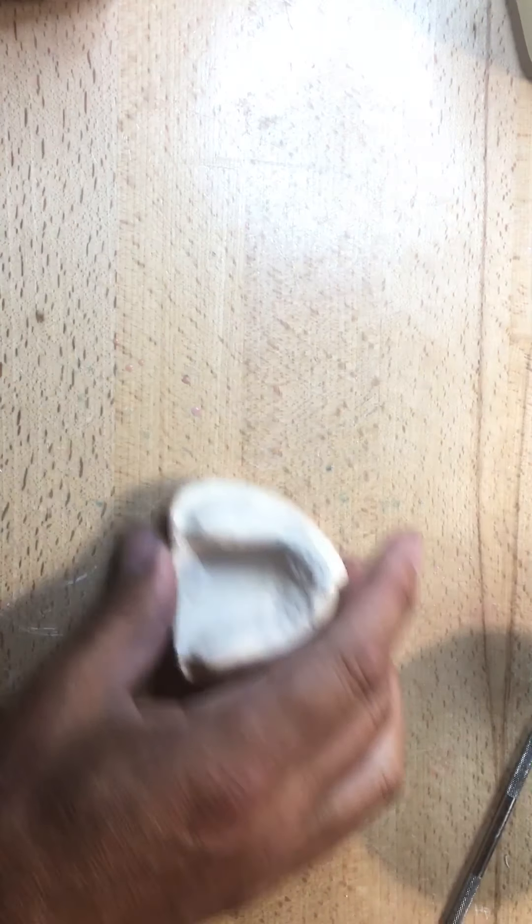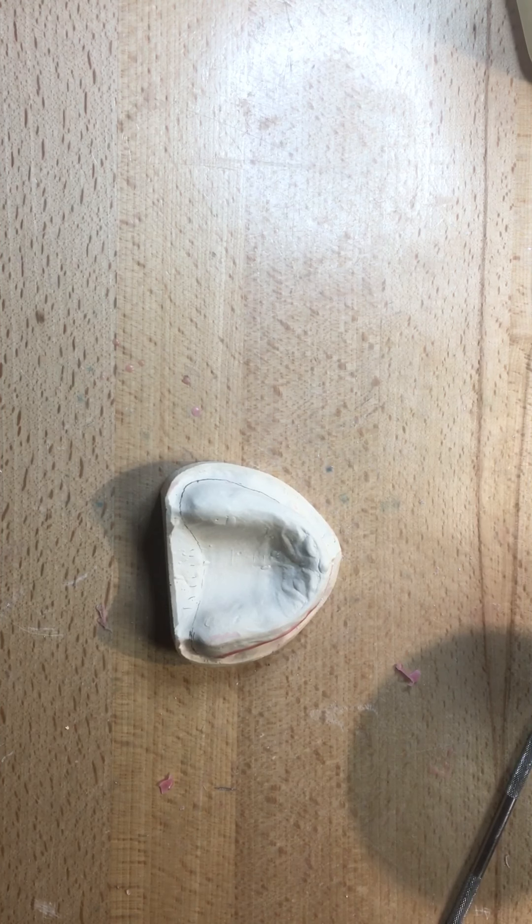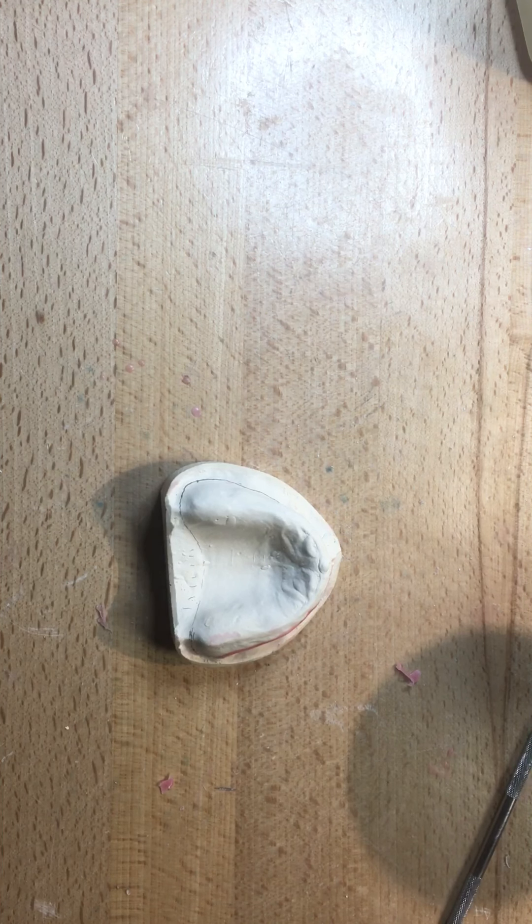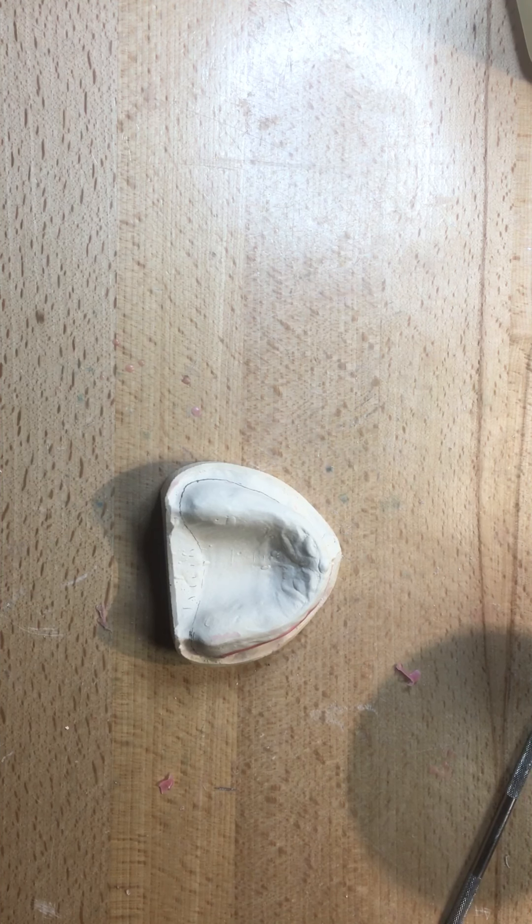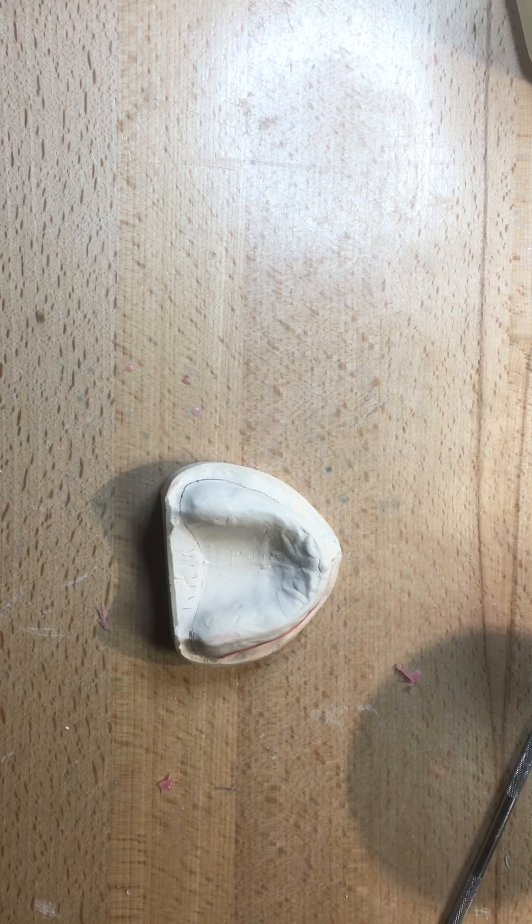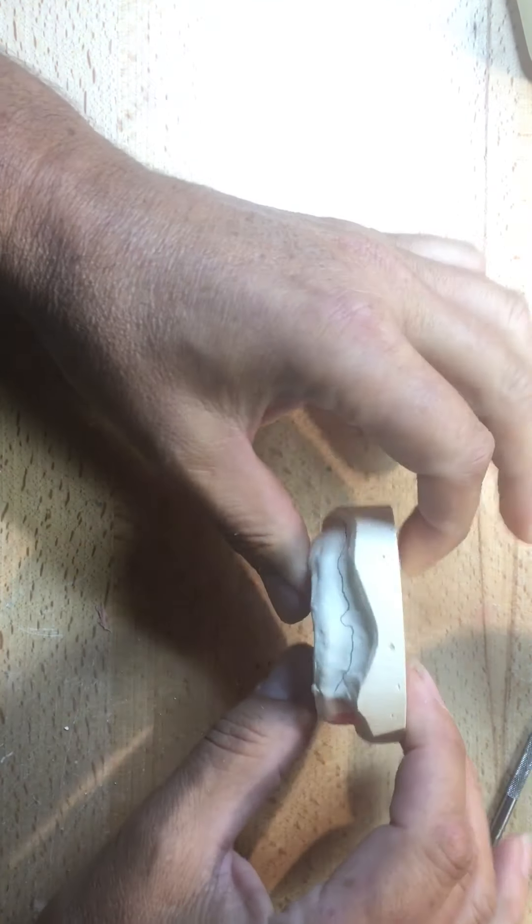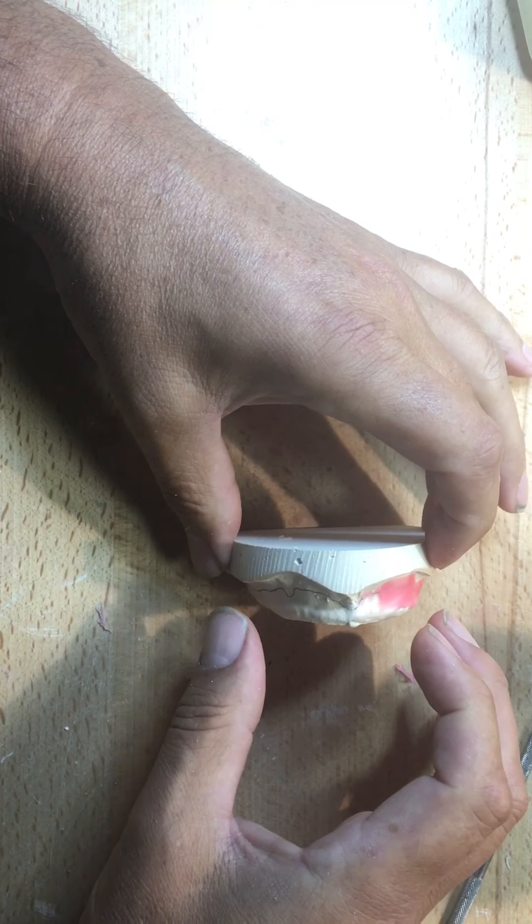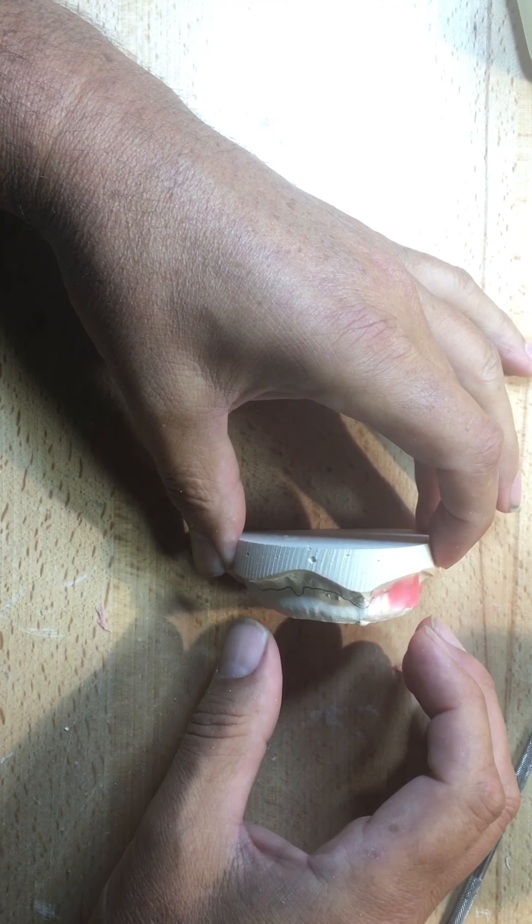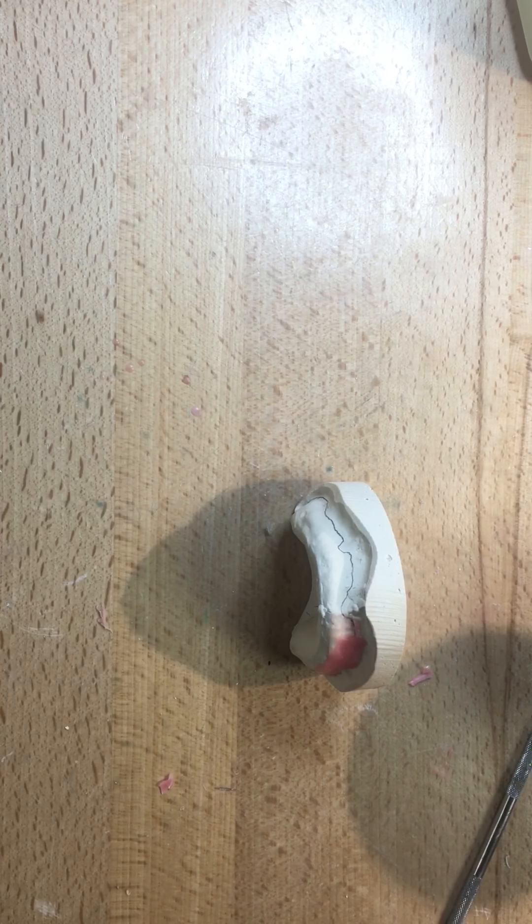And then I'll boil that wax off while I'm sure. But as you can see, I mean, we're overcomplicating the process of making a custom tray. I mean, I mentioned earlier that, you know, this is a 35 to $50 product, additional to the cost of the denture, takes, I guess, roughly 30 minutes to manufacture. Again, you see my pencil lines here. This is where roughly I'm going to finish my custom tray. And then when I put the stops, it'll be above that area. And then my compound will continue to those extensions.